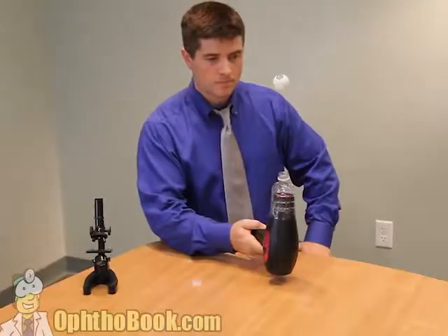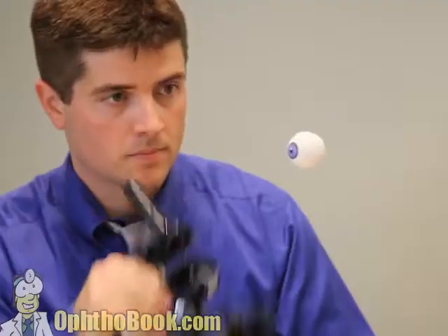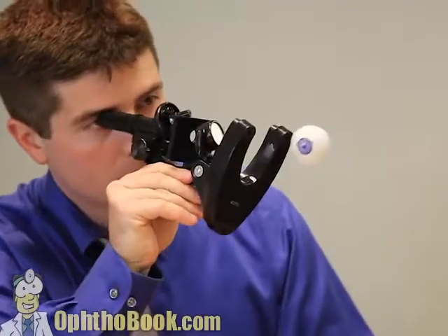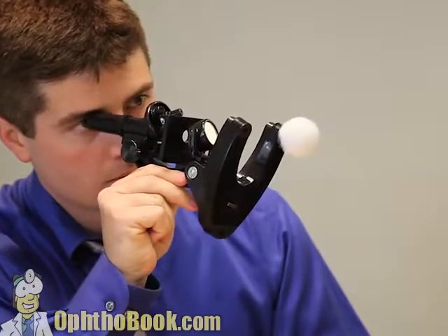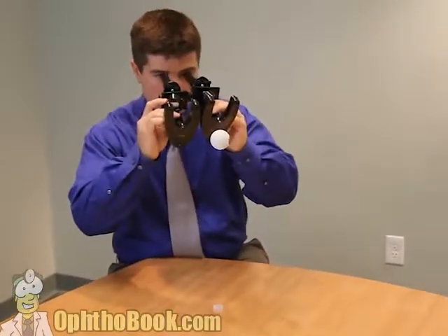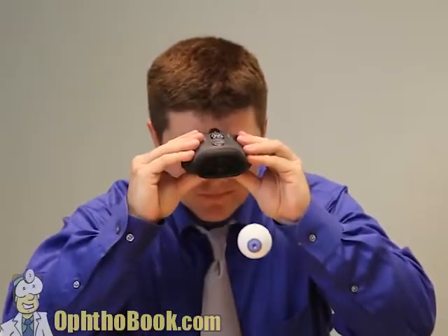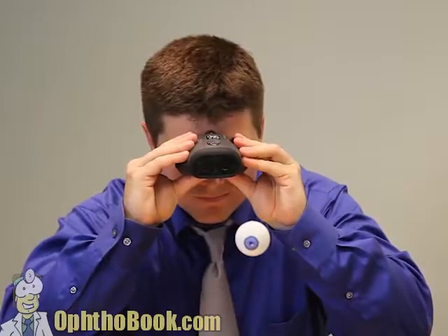Our patients don't like to lay flat; they like to sit up. So we need to take a microscope and move it so it's in a horizontal axis so that we can look at the eye. Let's improve our design by creating a binocular microscope — two of them — and meld these together into a single unit so that they're in focus and synchrony with each other. This is basically the perfect microscope.